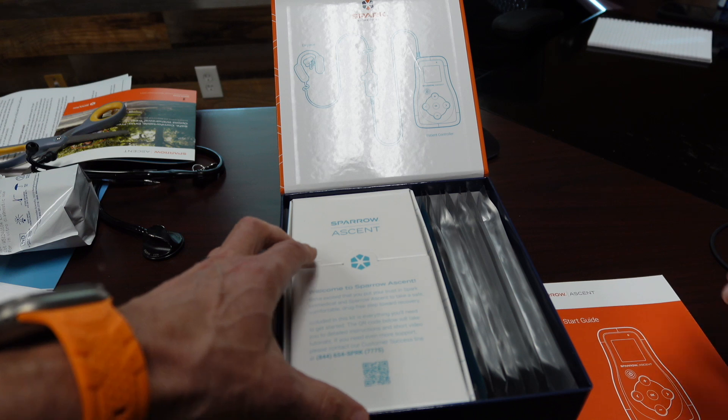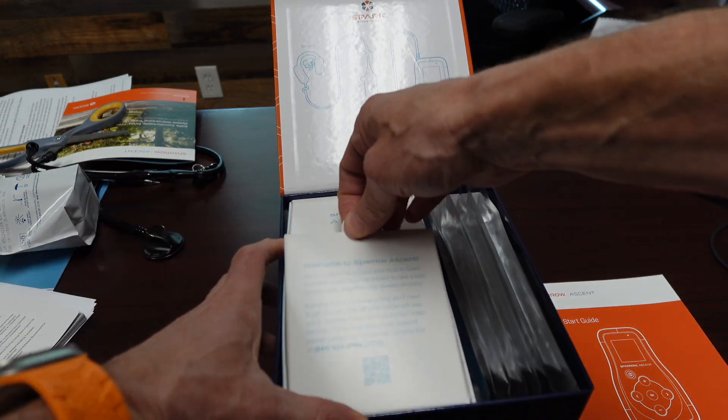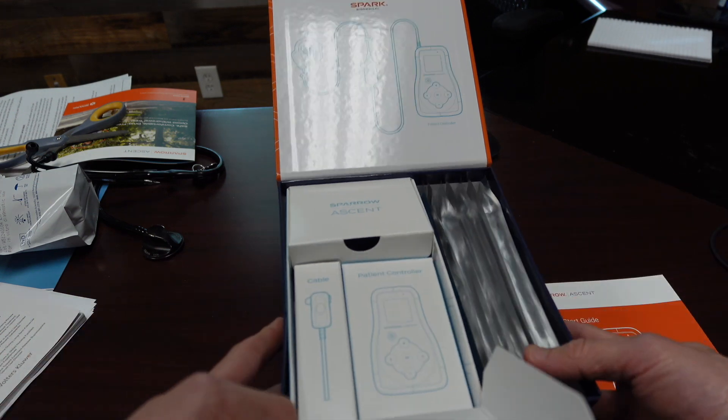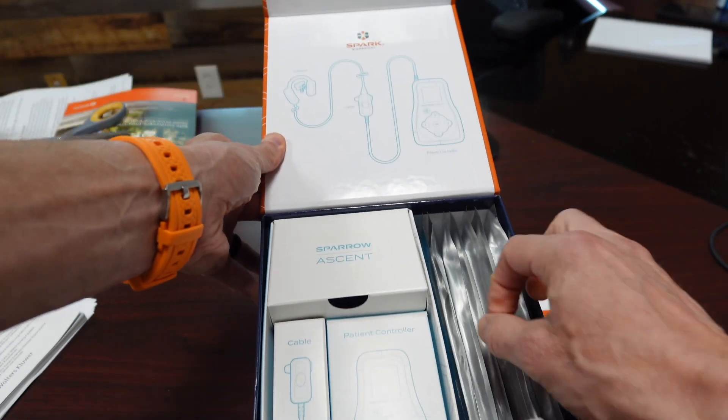This is patient controlled and it can stay on as long as you want. Each earpiece is one day. It comes with seven in the box, but usually a new patient pack is 28 days, which is great for longer treatment durations — people coming off of methadone, buprenorphine, suboxone, etc.